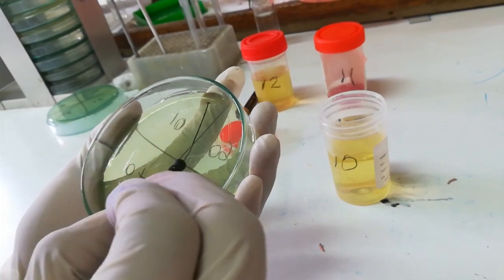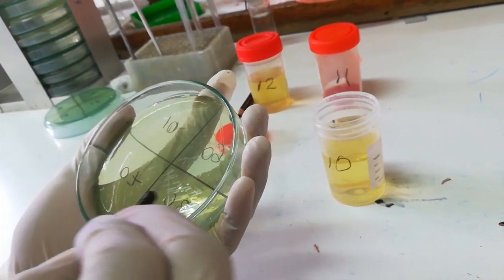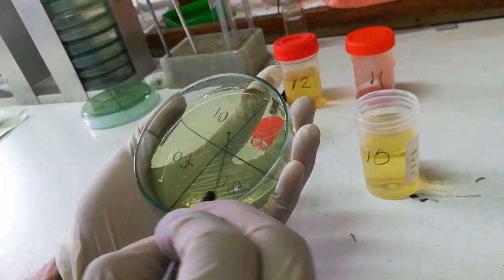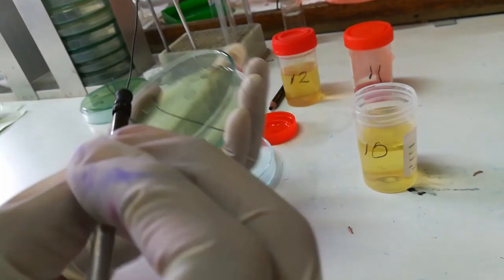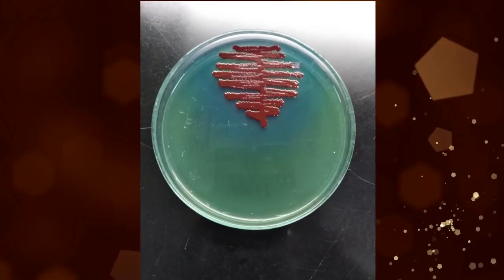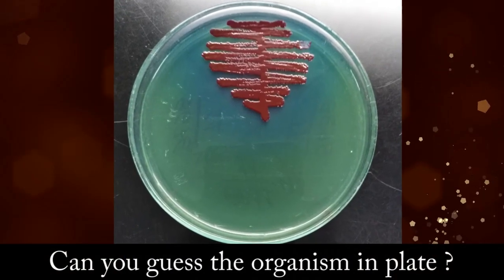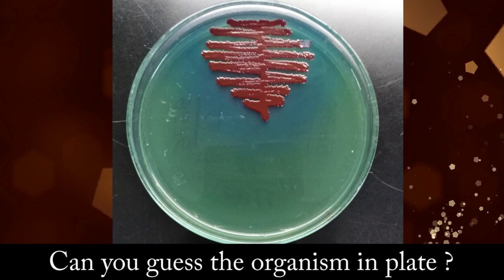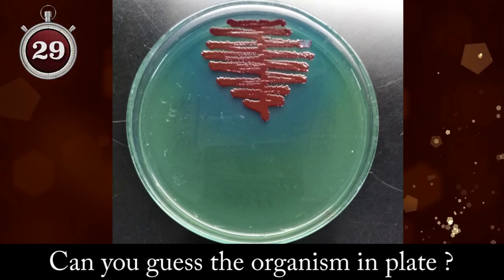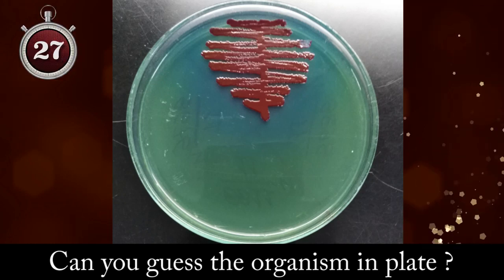After streaking the urine sample on CLED Agar Media, next day we were able to see this type of reddish colonies. Can you guess the organism in plate? I will give 30 seconds to think of the correct answer.